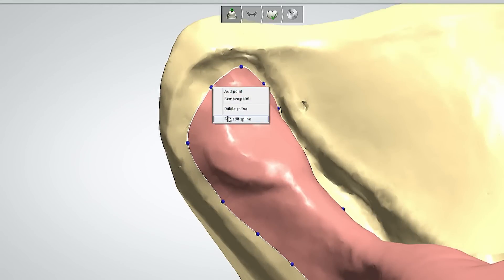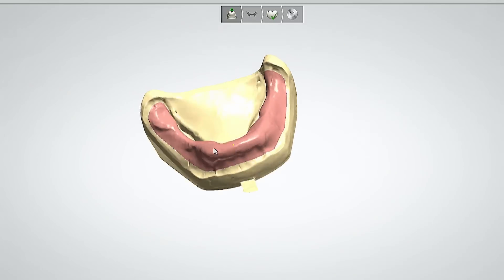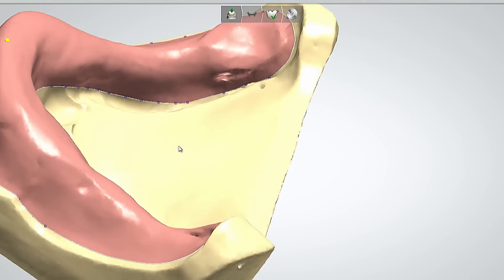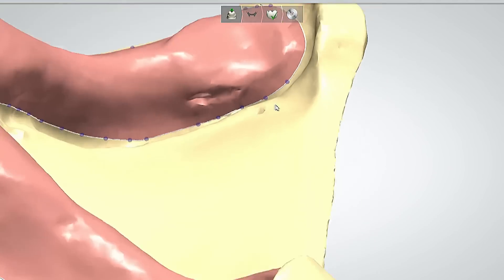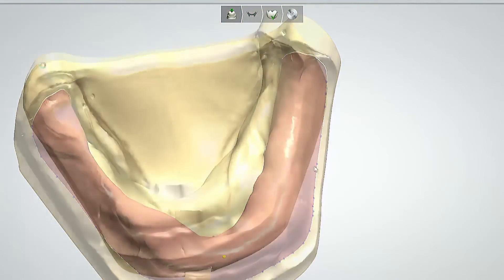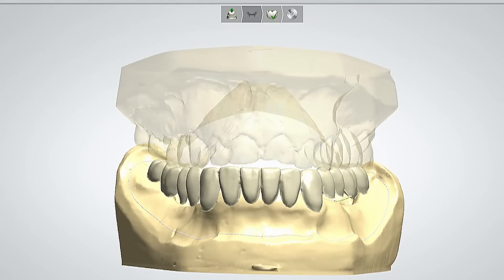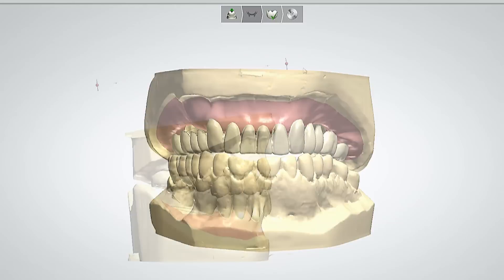In this scenario, she's outlining the final denture that I want processed, going into the depth of the vestibule and capturing all the borders. As you can see, with the CAD/CAM design of this denture, you have the freedom and ability to go around and adjust your margins and adjust the different points on the outline of the denture. Once you have your base plate essentially marked out, the technician can proceed.